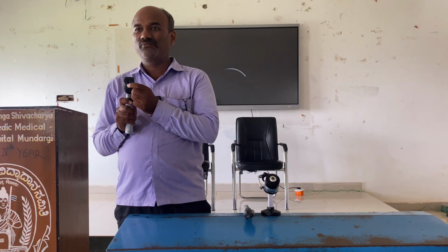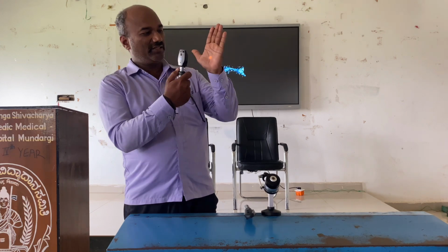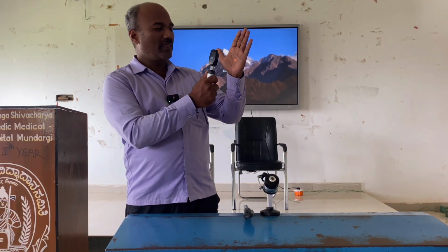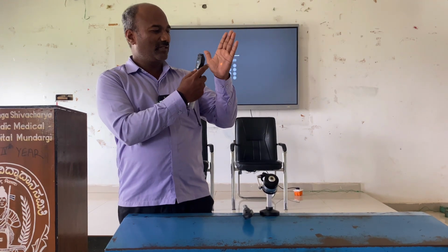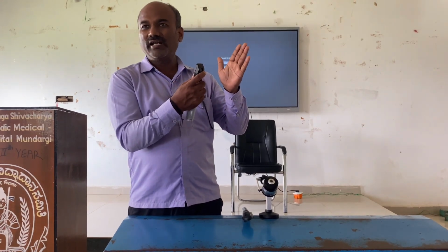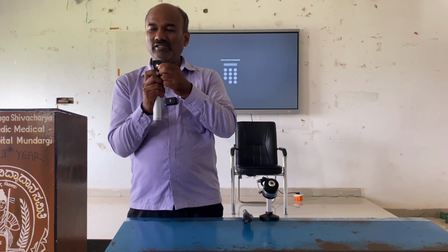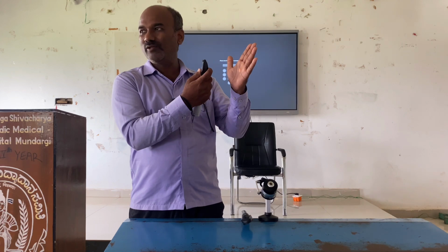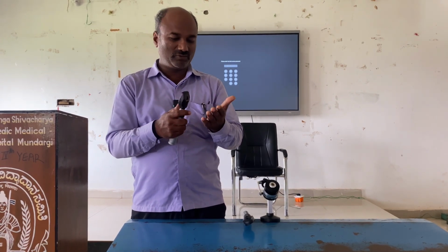One is this filter knob. Initially this is normal light. If I put the filter, this is half reduction, the half reduction filter. Whatever the intensity, these things are to be seen in a dark room. So if I put this knob in the middle, this is full illumination and this is half illumination. I will give it to you in your hands, you can operate this and see the difference.